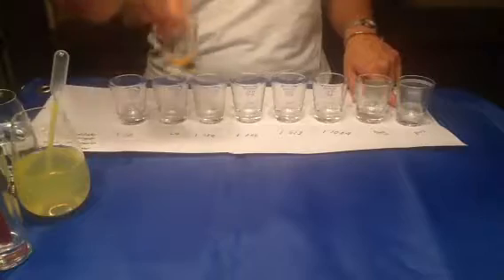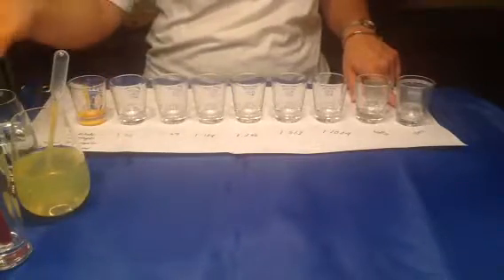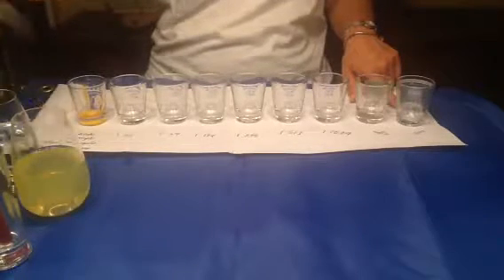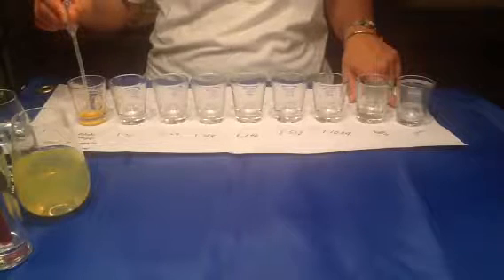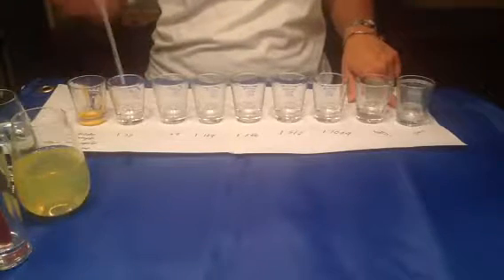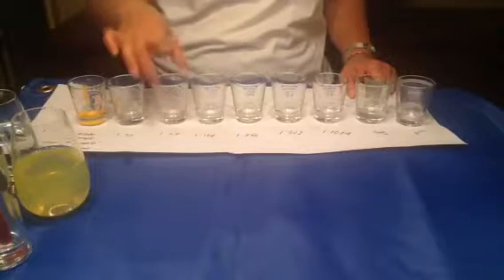I'm going to shake the initial dilution very well, and then transfer. Since I don't have a lot of pipettes, I'm going to use the same pipette that I used with the patient serum. So I'm going to transfer 500 microliters from the initial dilution to the first tube, which is 1 to 32. Shake well, and then transfer another 500 microliters to the second one.